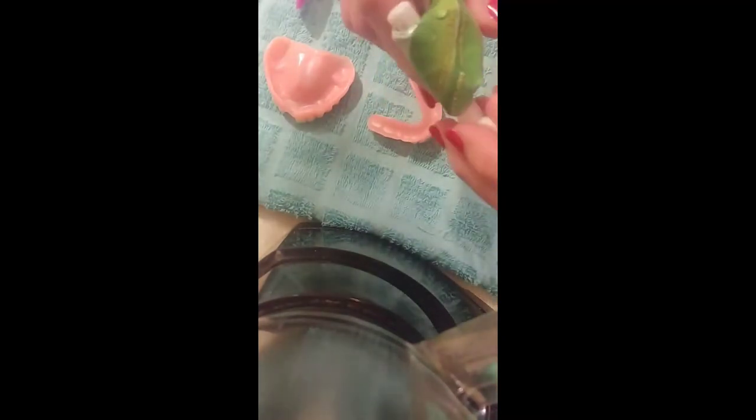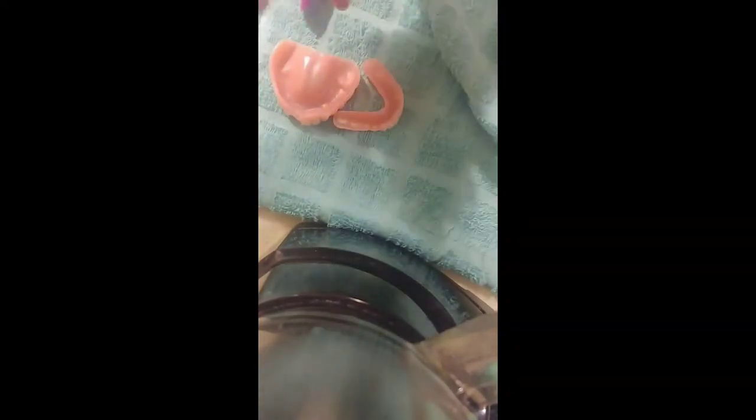I'm back and we are now going to apply our comfort lining. First, we want to make sure that our tube is dry. I'm twisting the key up, making sure it's ready to go. I'm going to dry my tube and twist it all the way up, then take my cap off.